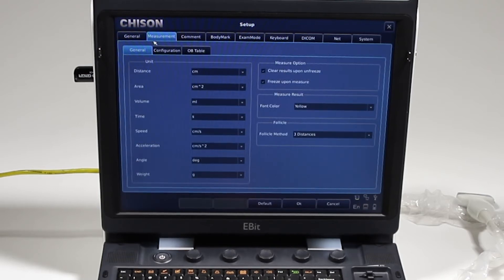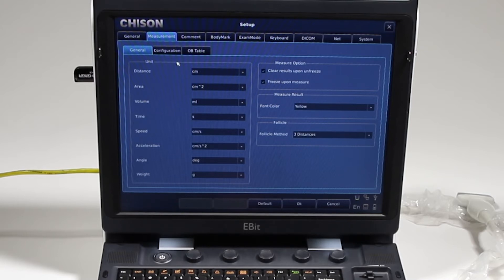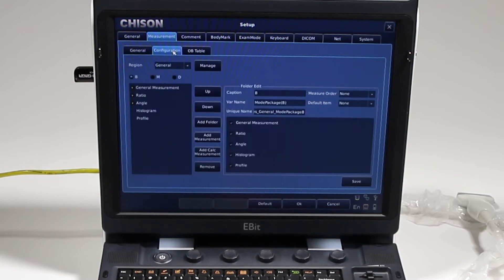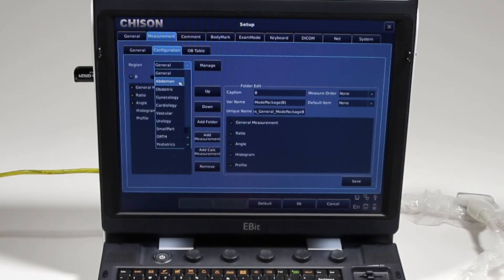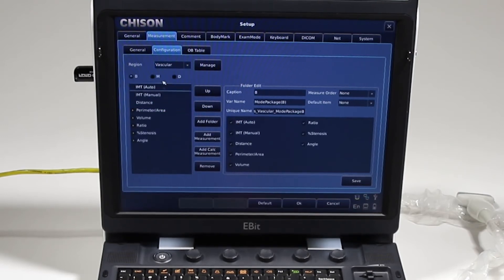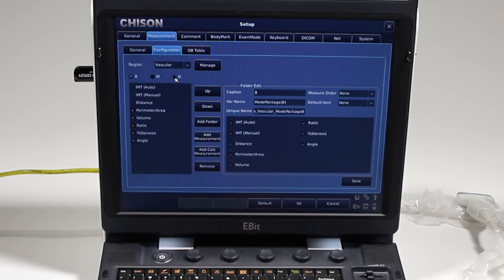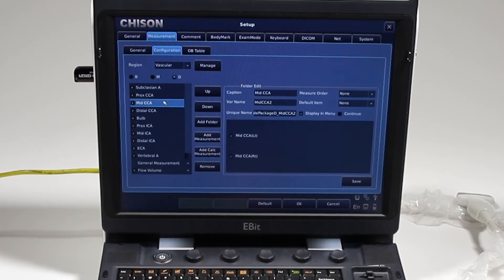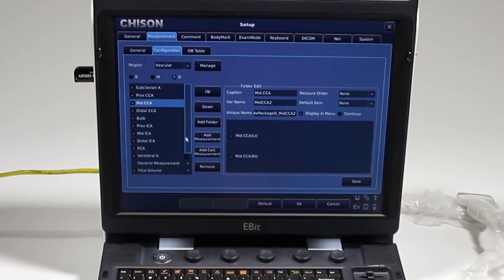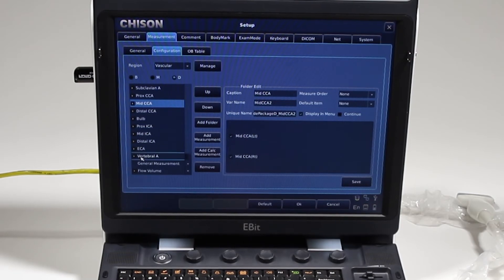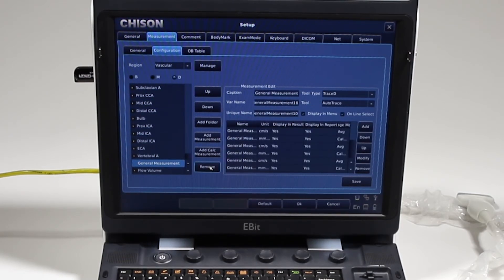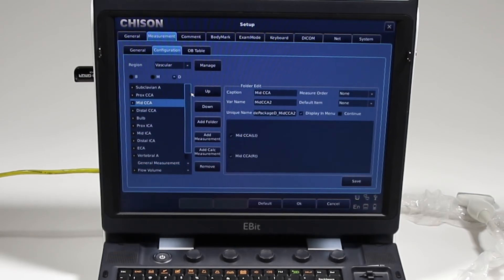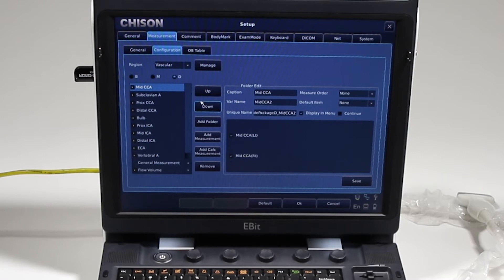Measurements: this is just where you can set your distance units and it's pretty straightforward. The configuration, however, is not necessarily straightforward. Here you would check the package. Let's go to that vascular. And here you can do the B-mode, M-mode, and Doppler. And this is where you can change which appear on screen. So if I don't want to look at all these, I can just remove them from that menu by clicking remove, and I can move them up and down.